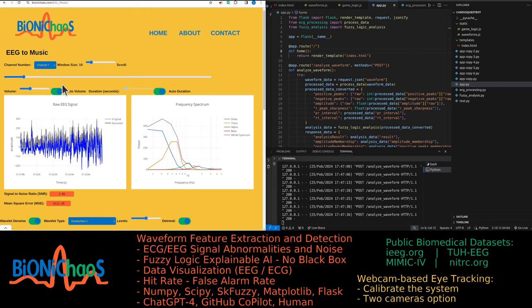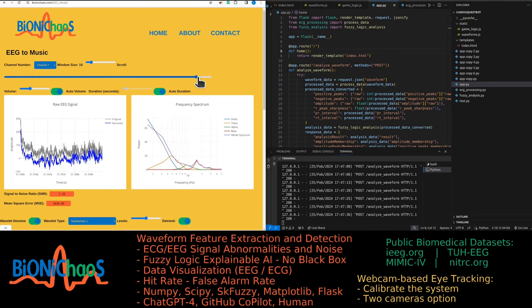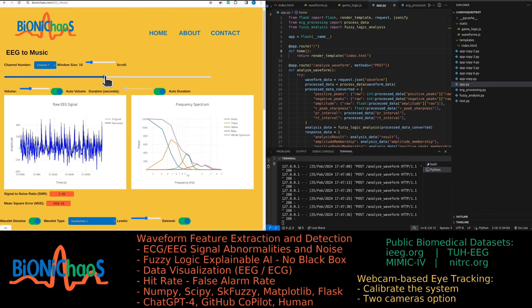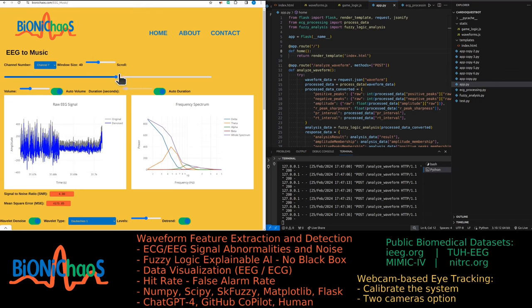Anyway, those need some more development. But essentially the auto volume will make the volume very quiet when there is no seizure, like at the end of this data sample. And we know there is a seizure in the middle, so it will become louder. The auto duration will adjust itself to the window size.